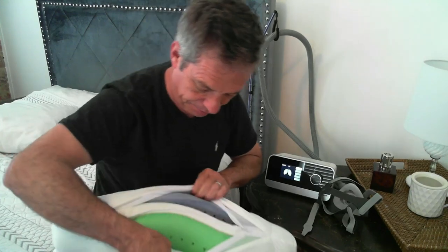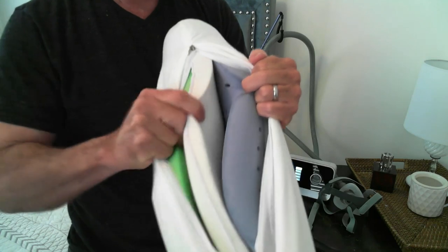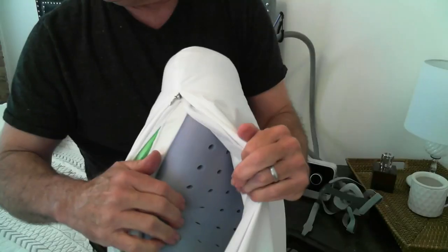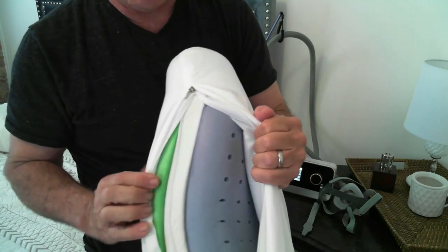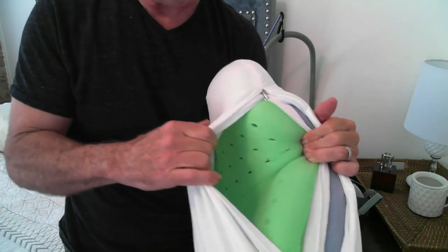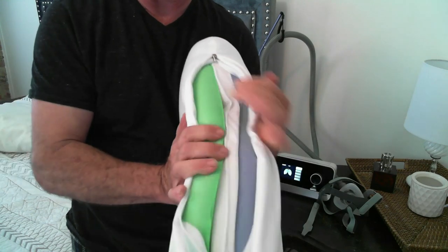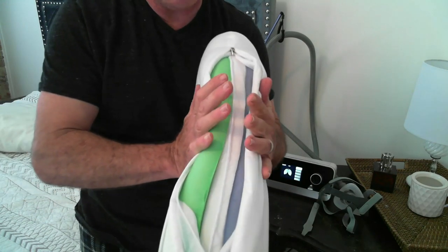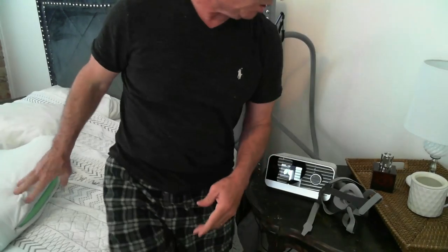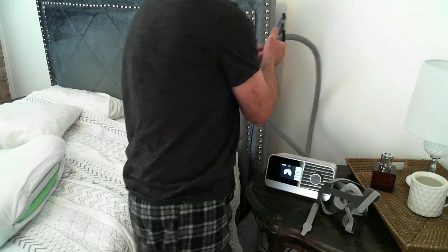It actually has a removable center layer which would lower the height. Also check out this foam — it's ventilated for easy airflow, see all those vents. This one is infused with herbal fragrance, it's really super nice, and it's very flexible with a gel material that molds to your shape. CPAP pillow — excellent.